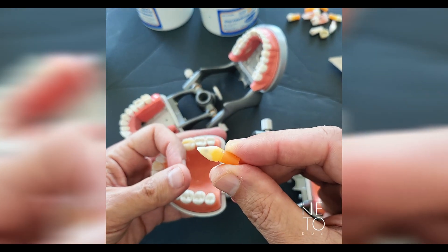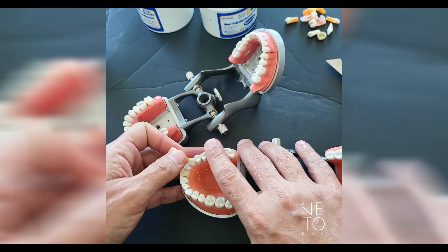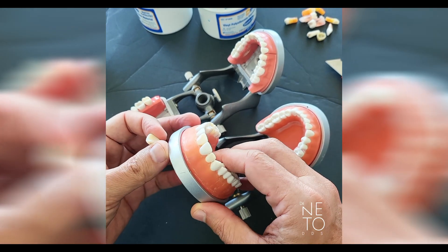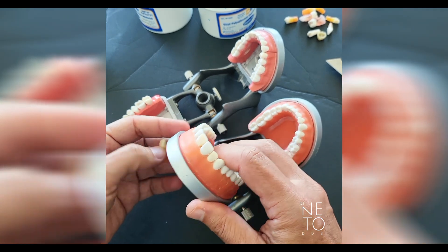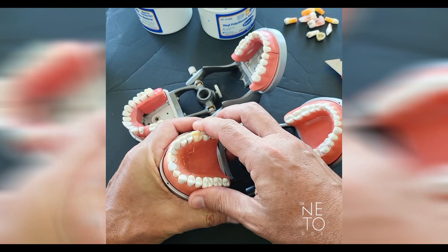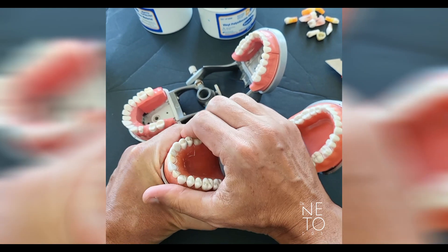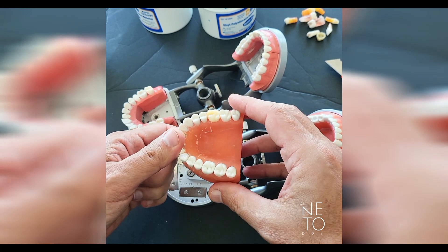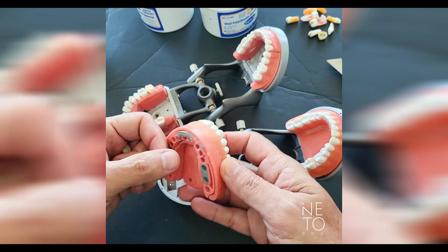Instead they started to do it on a specialty typodont. This restorative one has 'DK' marked on it and is called Modu Pro 1 or Modu Pro M300. The difference between this one and the other one is tricky, and this M300 comes in just one arch — upper and lower like this.